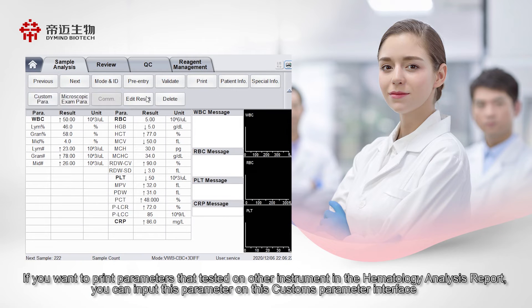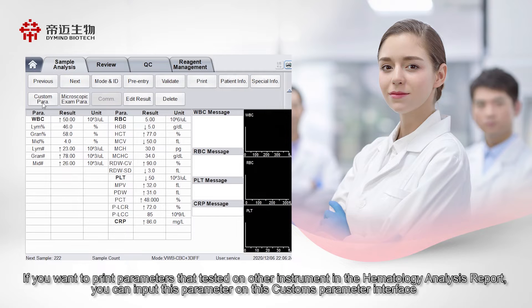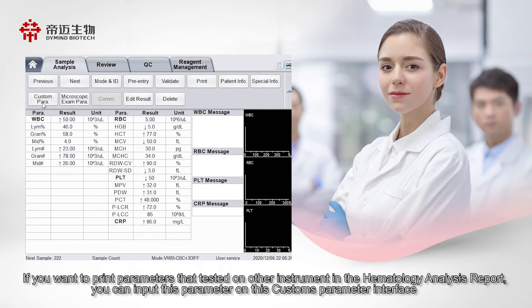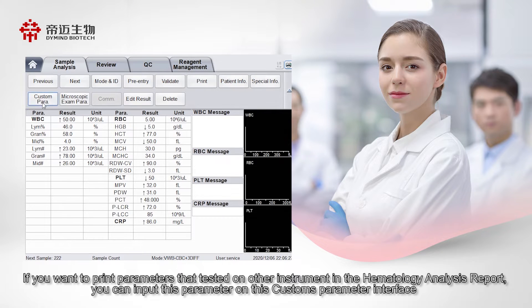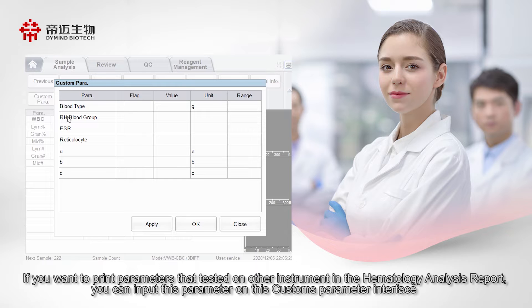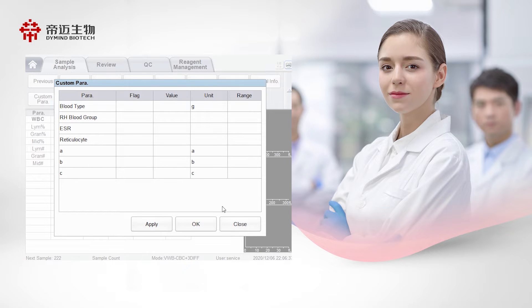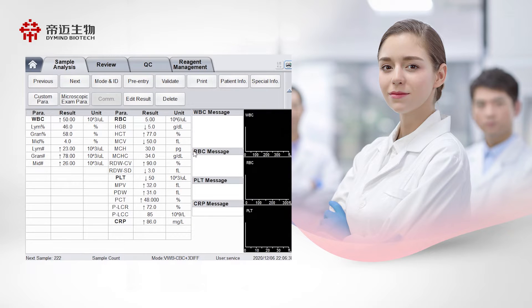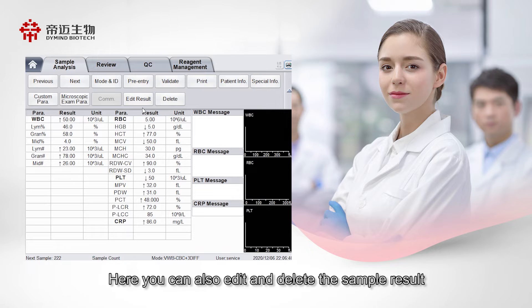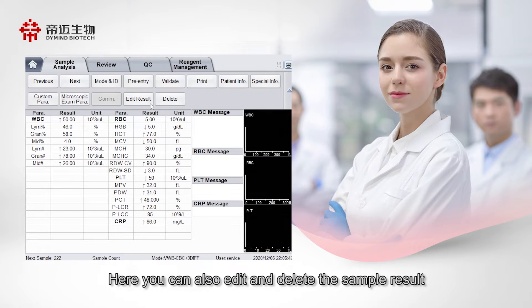If you want to print parameters tested on other instruments in the Hematology Analysis report, you can input those parameters on the Custom Parameter interface. Here you can also edit and delete the sample result.